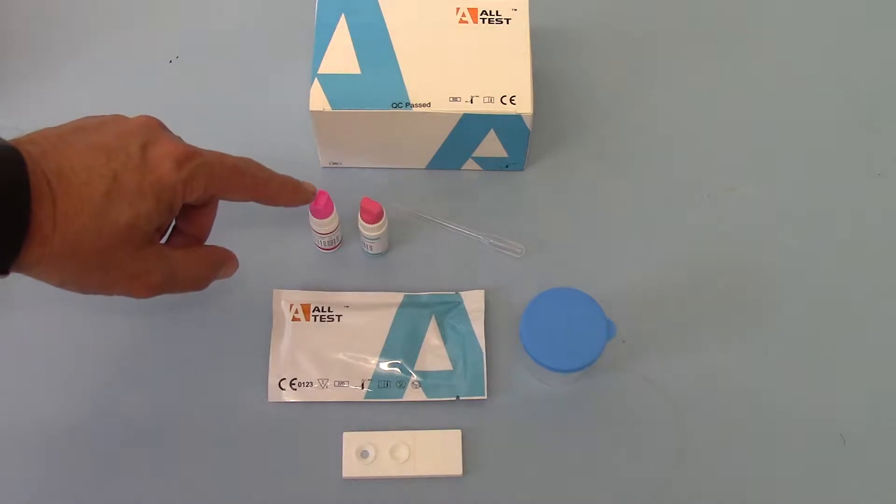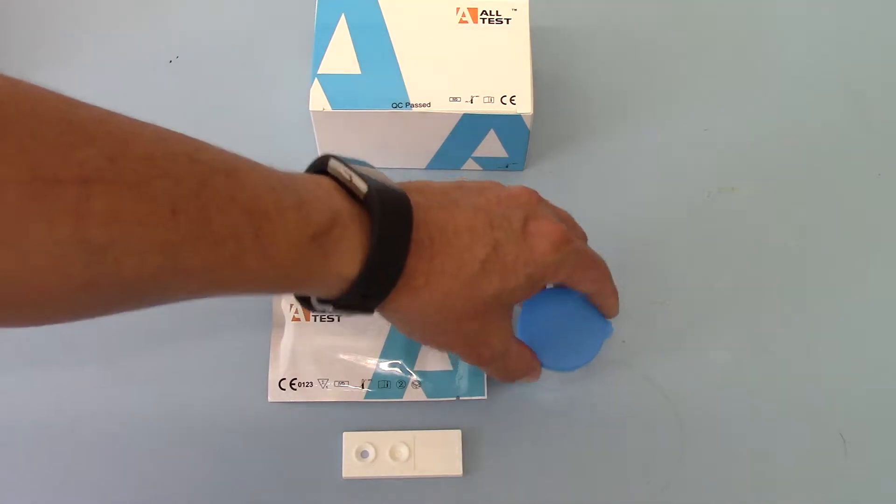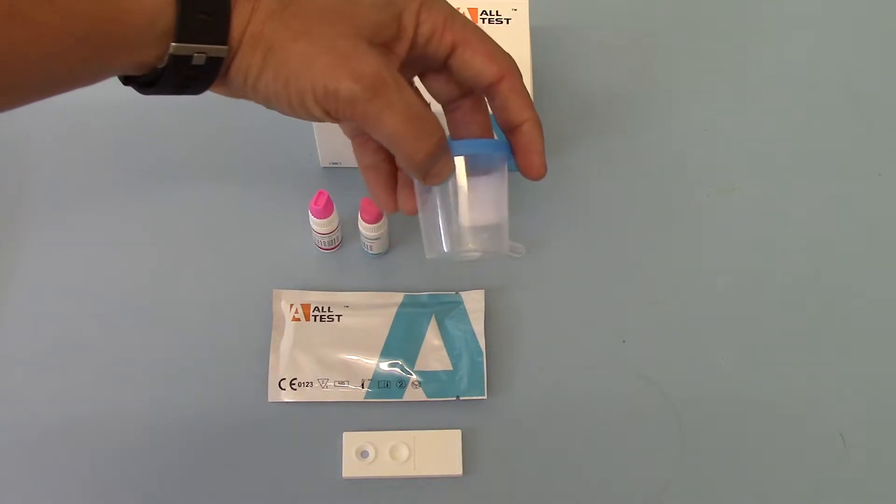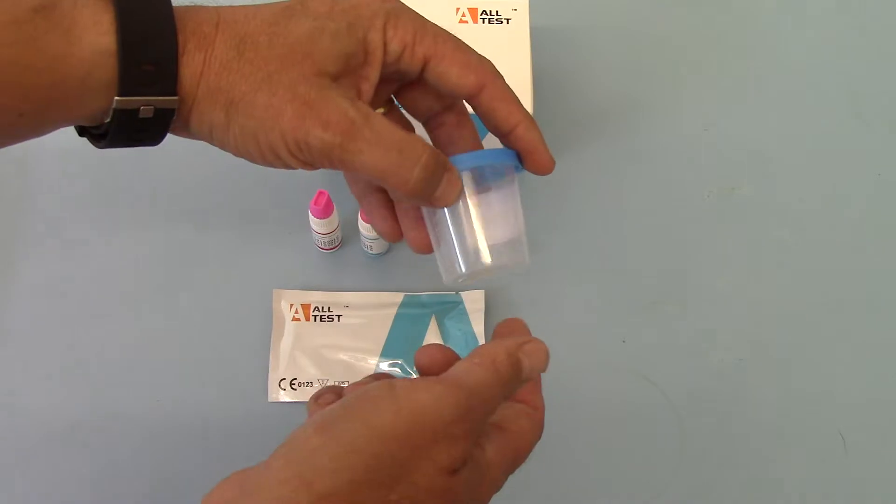You get a blue staining solution, a pink clear washing solution, a sample collection vial with yellow crystalline material in the base.